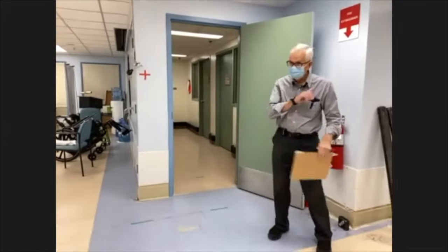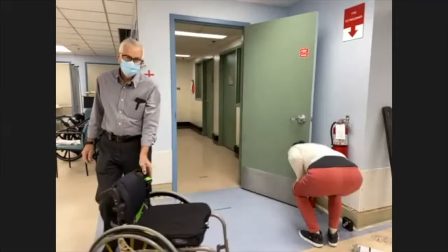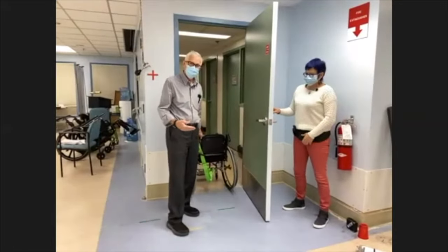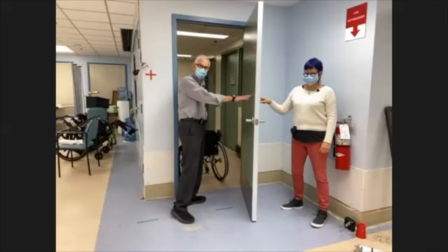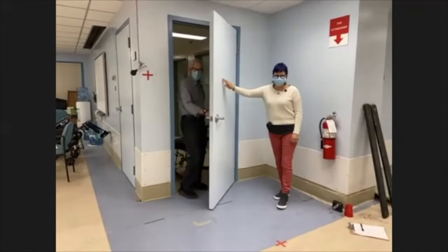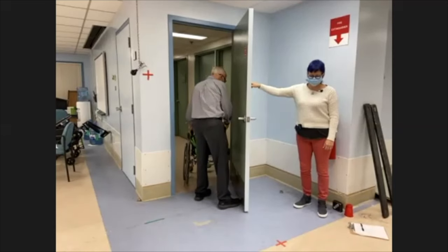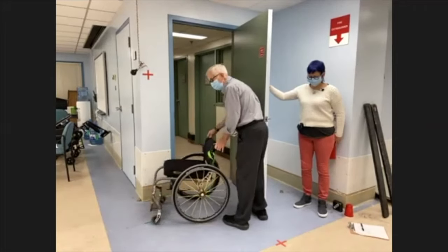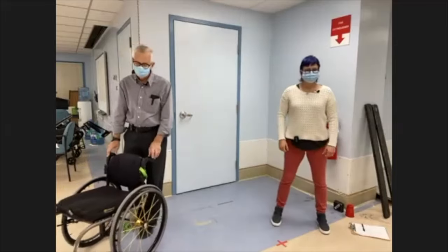For the caregiver approach with some resistance on the door: the trick is to keep your body or foot to resist the door closing, then back your way through. Once through far enough, turn the occupied wheelchair away from the door so it closes behind you without hitting any part of the person in the chair.